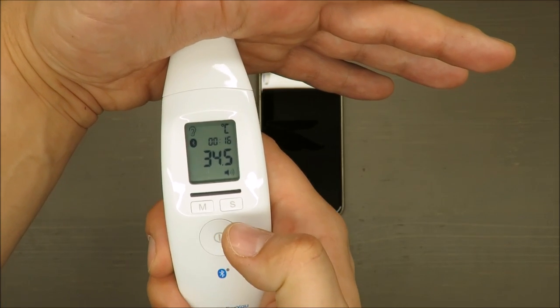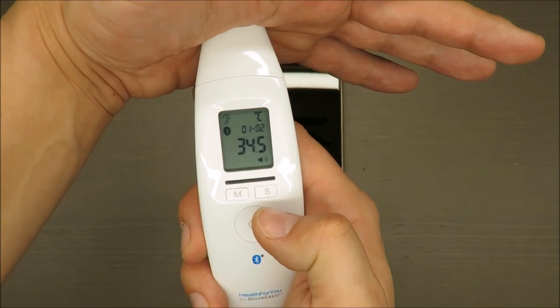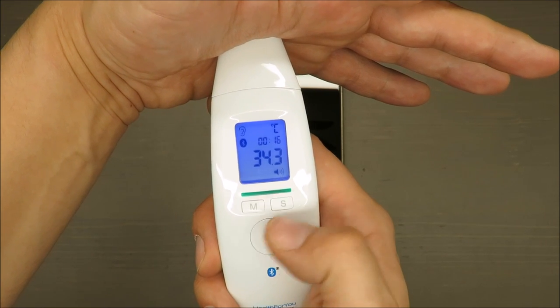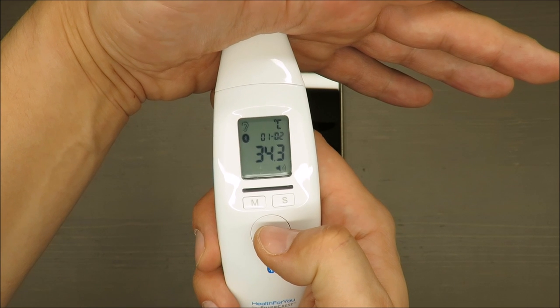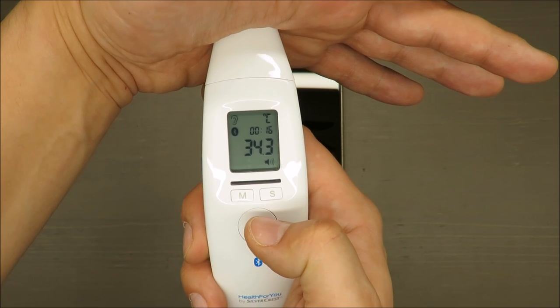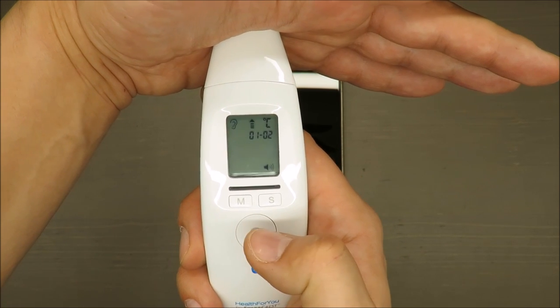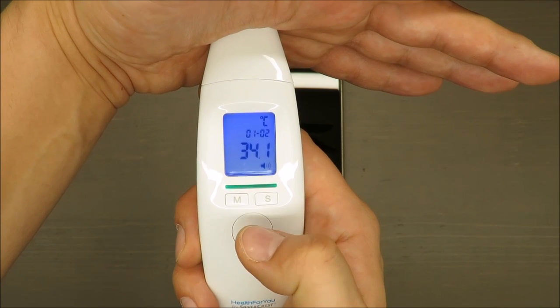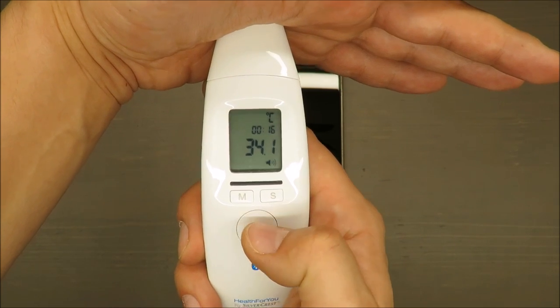Again, decreasing. This is the same spot. I know it should be done on a different part of the body, but I'm just checking constantly the same spot. Each time the temperature is lower and lower.